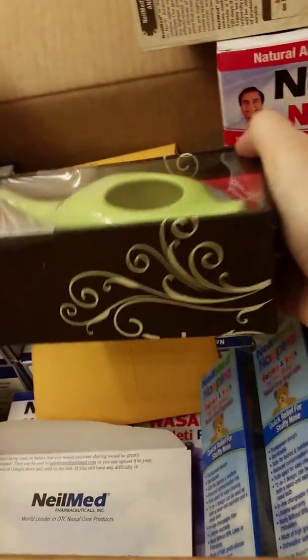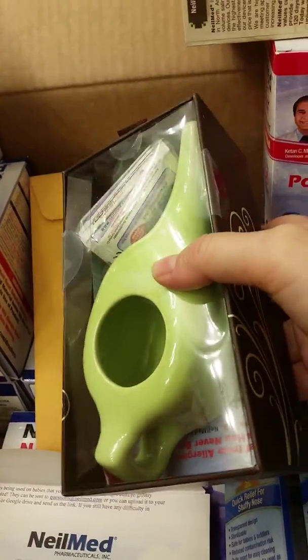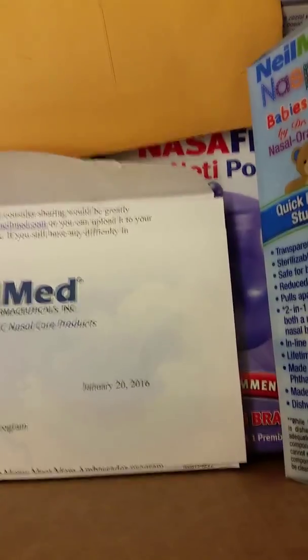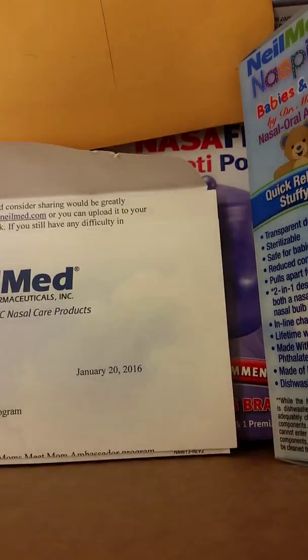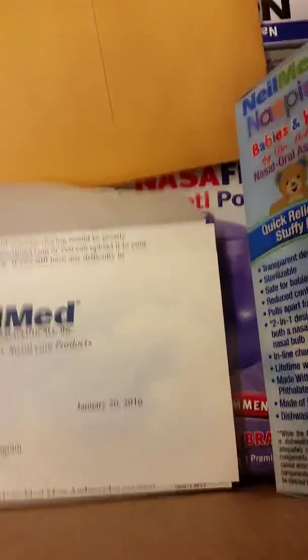So there's the porcelain — this is the classic neti pot, the porcelain one, which is really neat. I like the box, it's so nice. If you were traveling, it'd be nice to travel using this box so you don't have to worry about it getting broken.